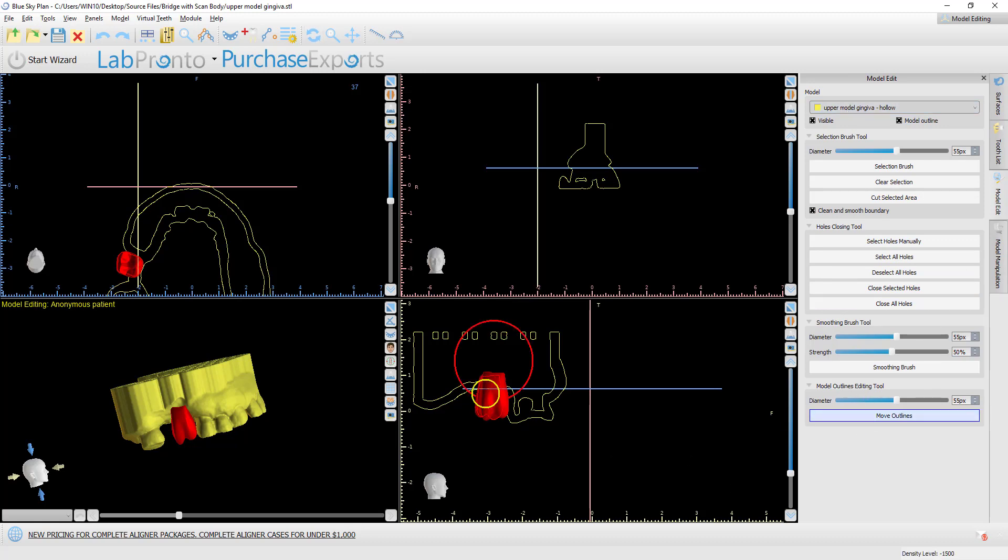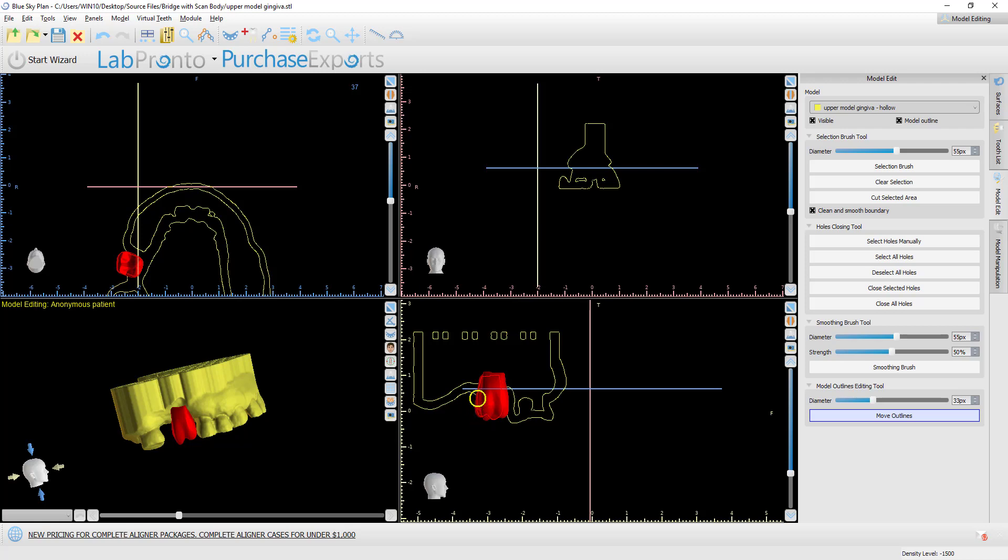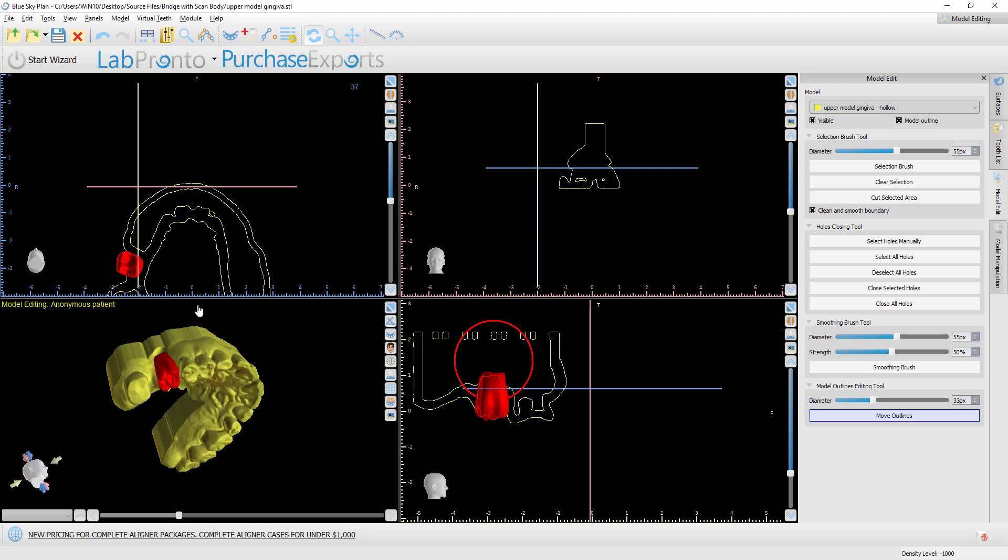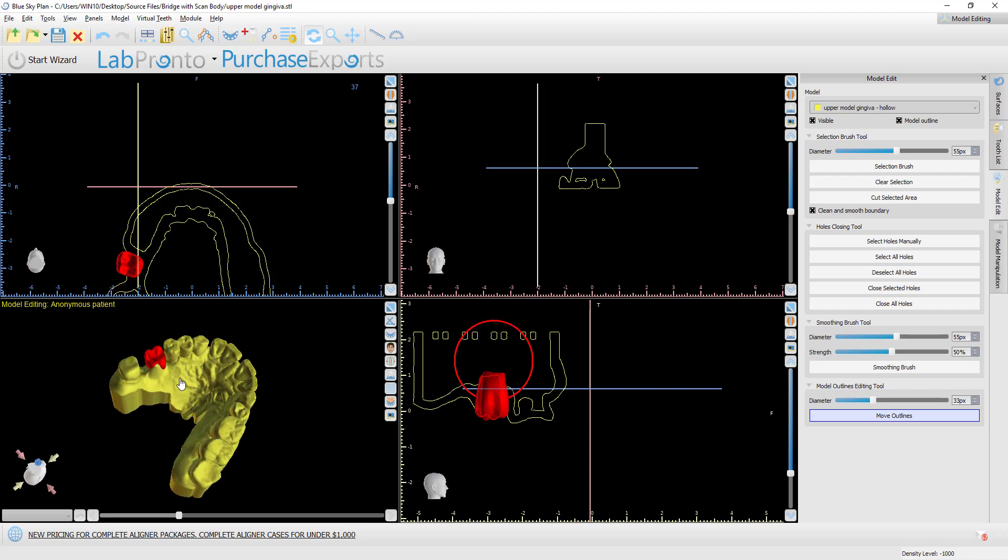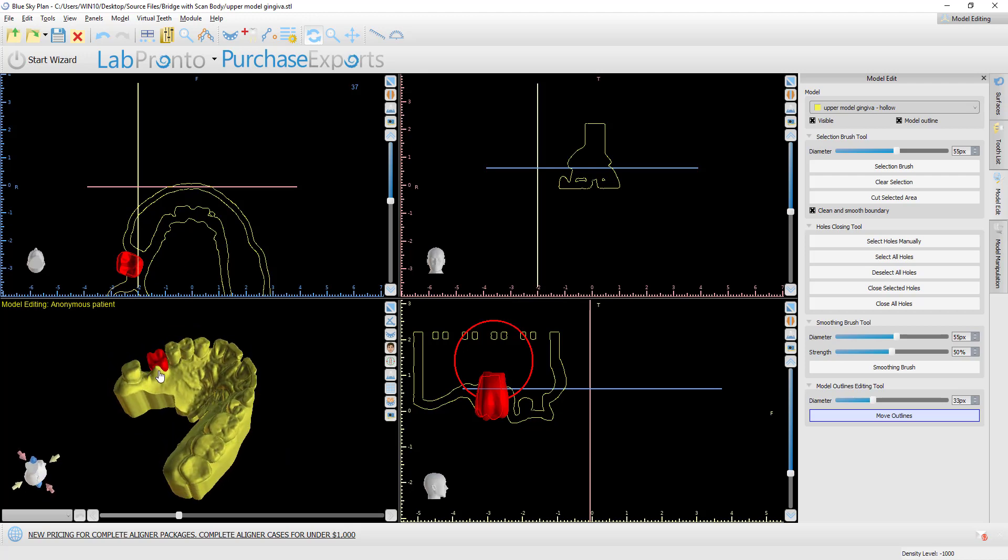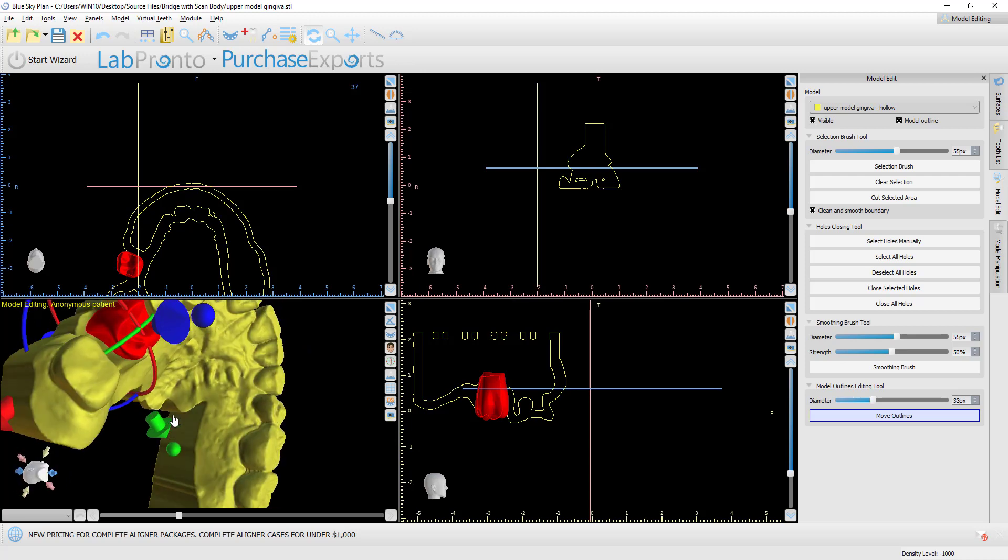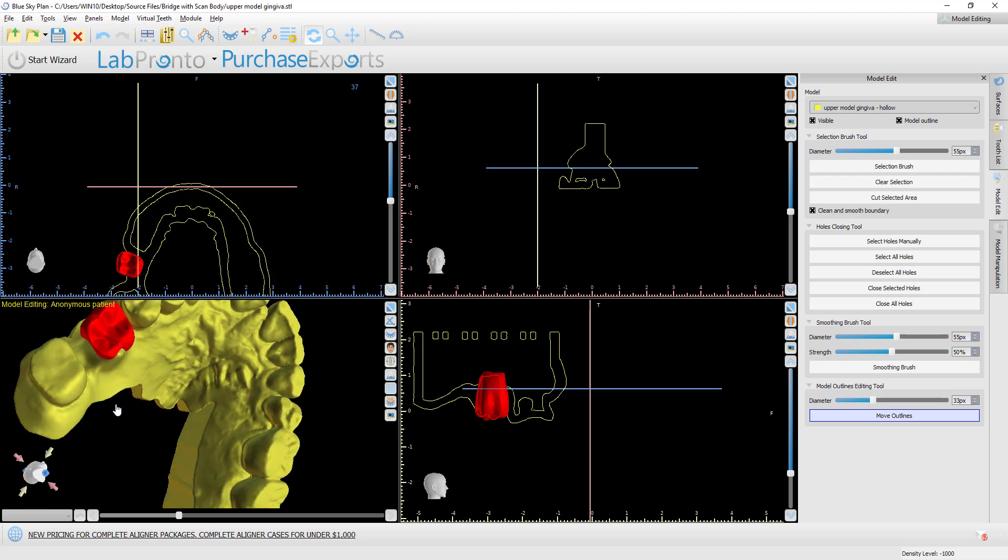What we're going to do is select the relevant model in our model edit, relevant model, and click move outlines. We hold down the shift key. Our cursor turns into these circles. We can change the size of the tool. And we simply grab and drag and watch in 3D as we do this, the outline. We can see that our model updates automatically. So we've extended the model. I overdid it here a bit. We could extend the model upwards if we want to use that to meet the crown.